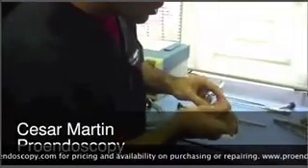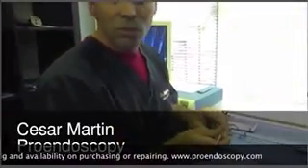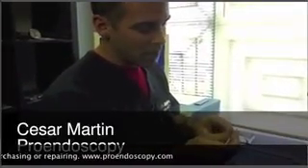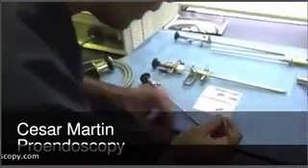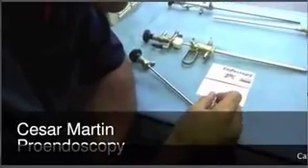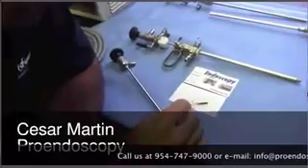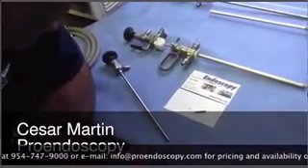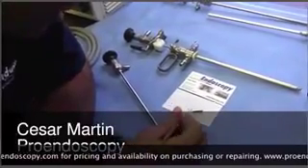Autoclavable scopes mostly have a distal solderable window, and behind that window it protects the distal tip. Behind that window is the objective lens. A lot of cases the shaver breaks or damages that distal window — you have a window here and an objective here. So that window gets damaged and that's what causes the fluid to enter at the distal tip.